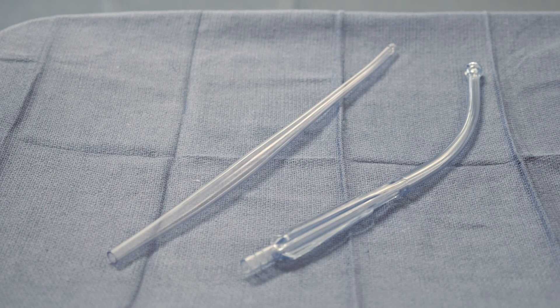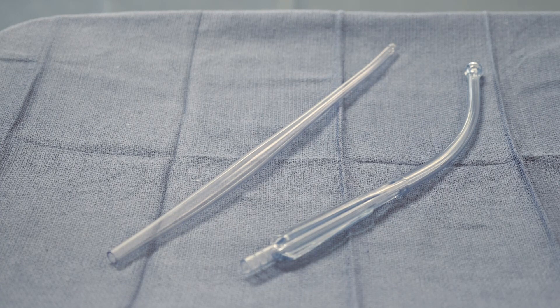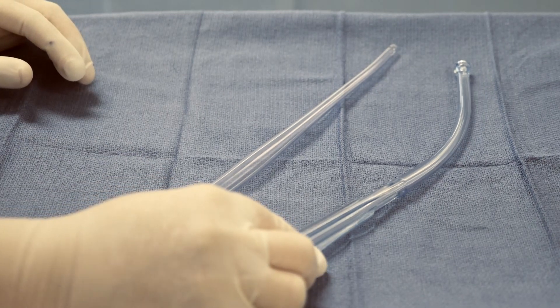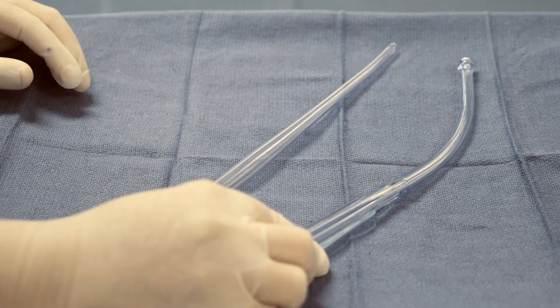These suction instruments are called Yankauer suction tips. Here we have plastic instruments which are one-time use.